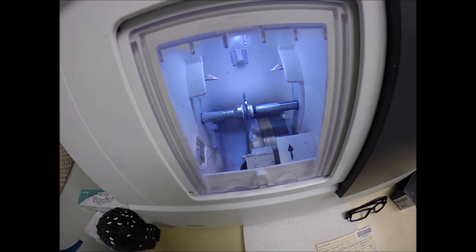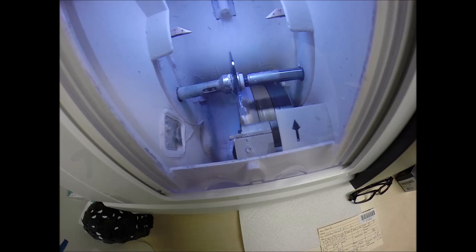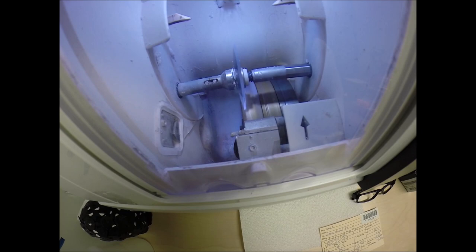And let's go around tracing the shape of the right lens. And then the old carpenter saying measure twice cut once is now measuring the thickness of the lens to know exactly where to place the bevel so you have the least amount of edge thickness showing, of which you're not going to have any with your prescription in this frame. But I do cut very strong prescriptions all day long. For how much? For free, when you buy the frames from me. And that is a little bit more critical with stronger powers.